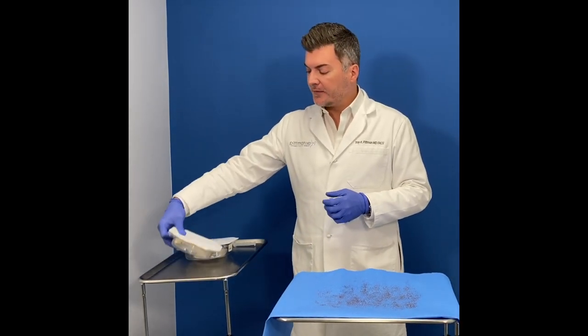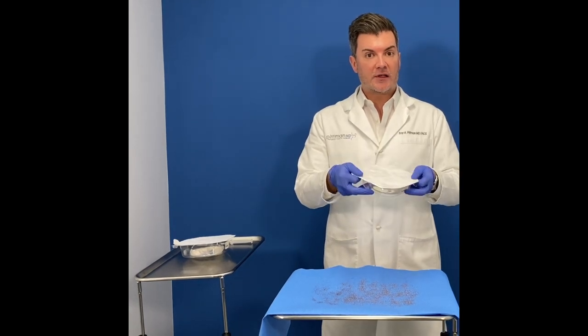So I'm going to do a demonstration for you today. This is breast implant packaging. It's completely closed.